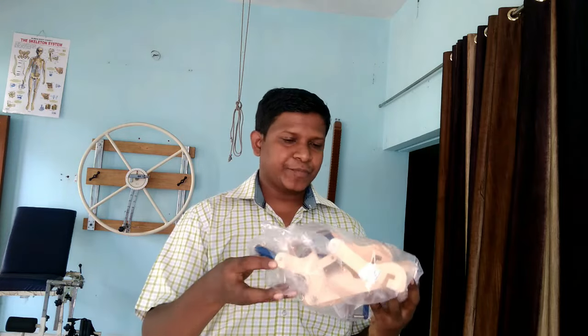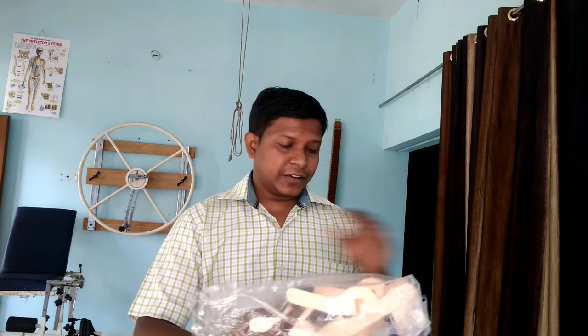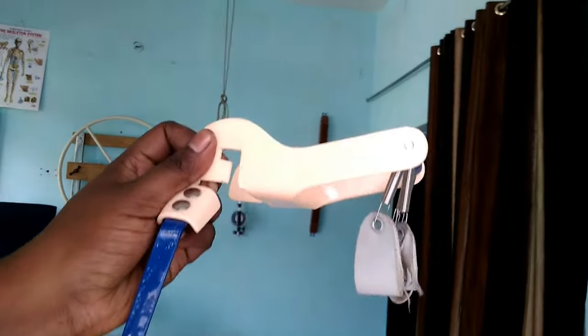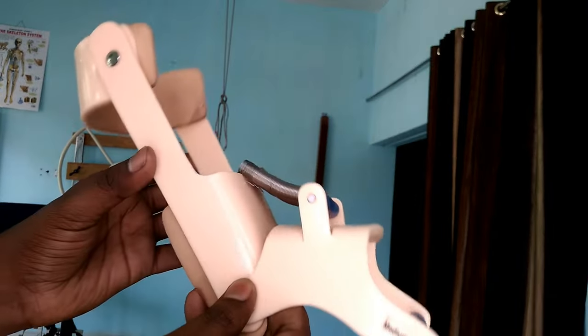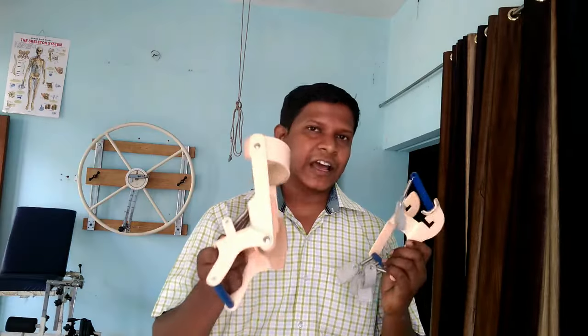Here I have a dynamic cock-up splint from Dynamic Techno Medicals. Let me do an unboxing of this product. Inside the box, wrapped in polythene, there is a manual. The splint has two parts: one is the finger extension support and the other is the cock-up wrist brace main body.